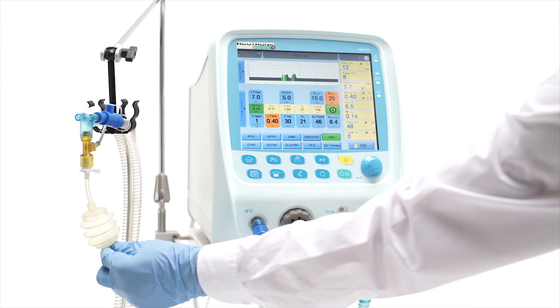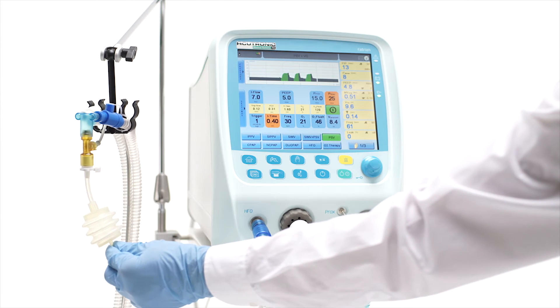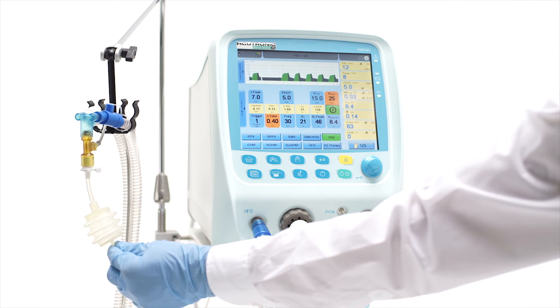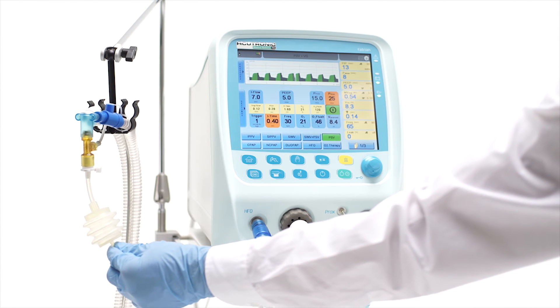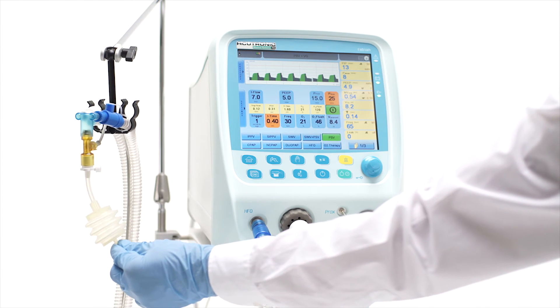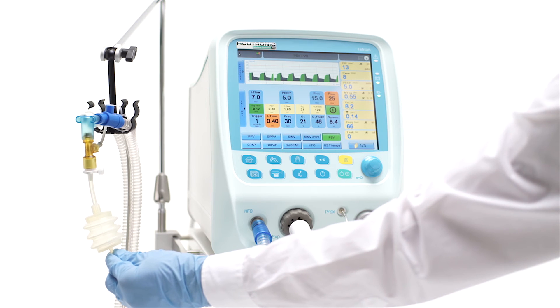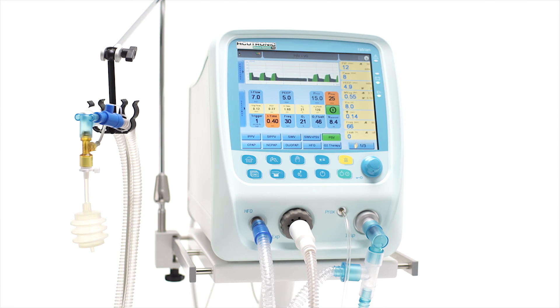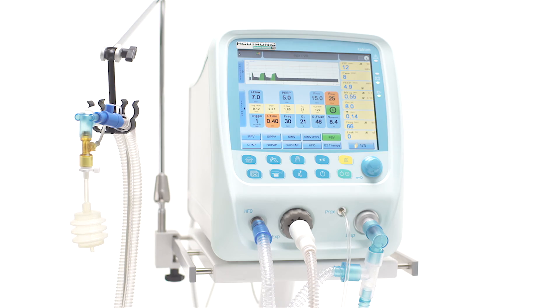Then properly set the other remaining parameters according to the patient's need in the same way shown in SIPPV mode: I-flow or rise time, E-flow, and PEEP.